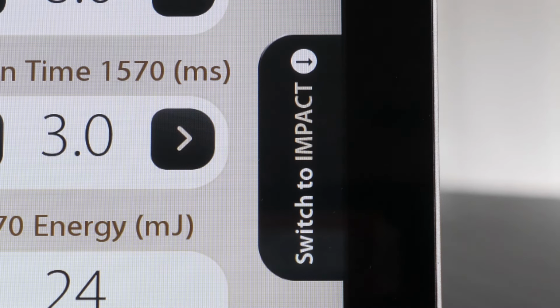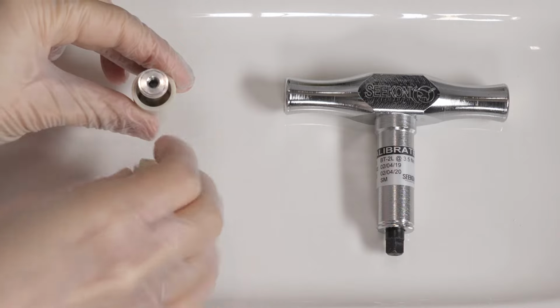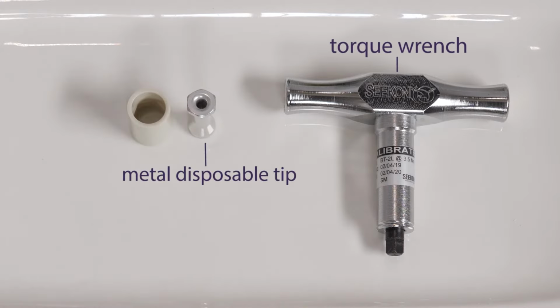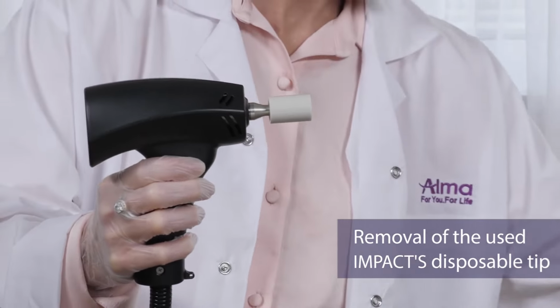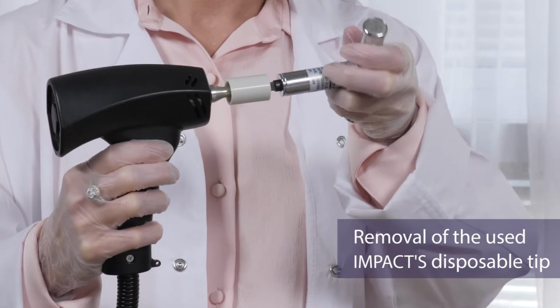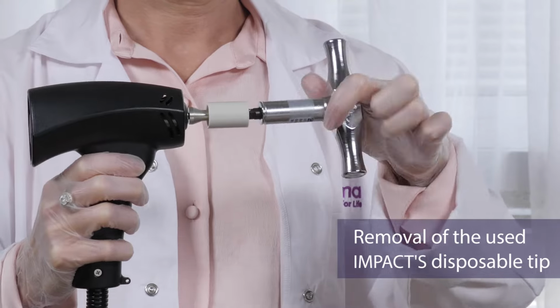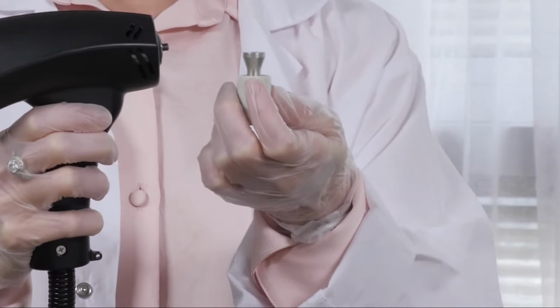Press Switch to Impact. To attach or detach the impact's disposable tip, there are 3 parts: the torque wrench, disposable tip, and the plastic socket. Connect the plastic socket to the used disposable tip. Connect the torque wrench to the plastic socket. Turn the torque wrench anti-clockwise. Remove the used disposable tip.